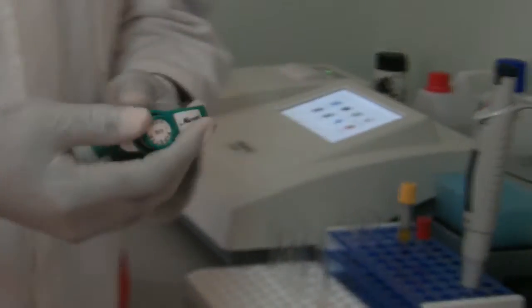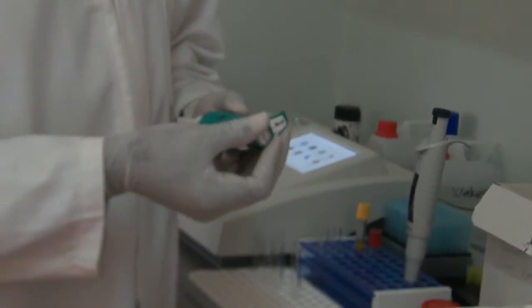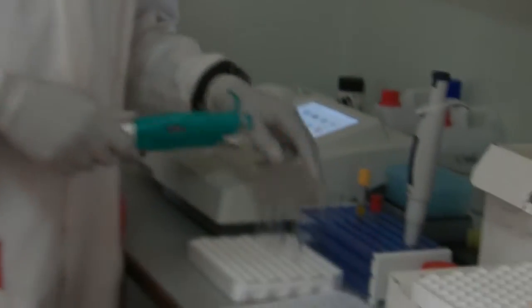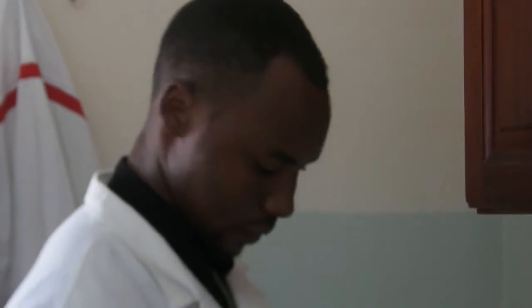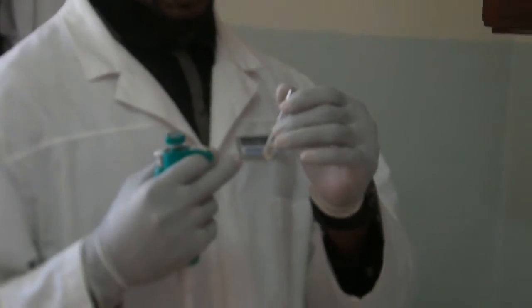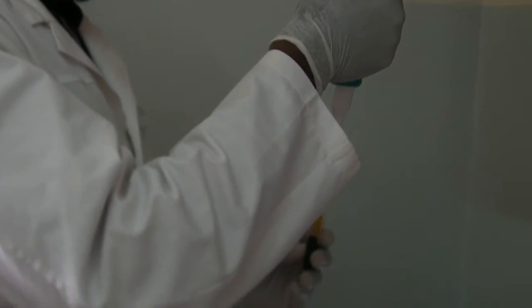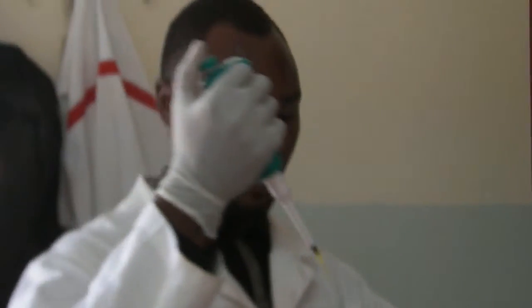Alright, so you have to measure patient sera, you have to measure 10 microliters of patient sera and you add to the measurement you made for total cholesterol. So we're dealing with one tube right now. If you're dealing with many tubes then you'll have to label them. But for this case, I'm not labeling because I'm running one test right now. This is 10 microliters.